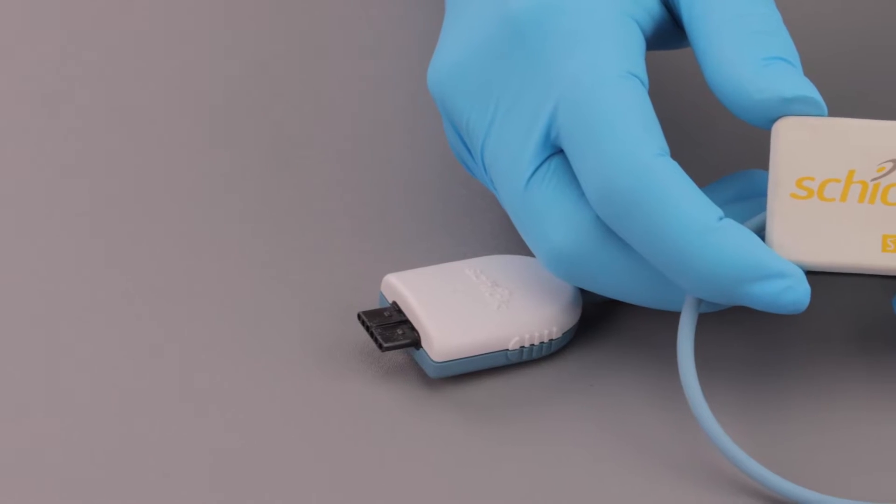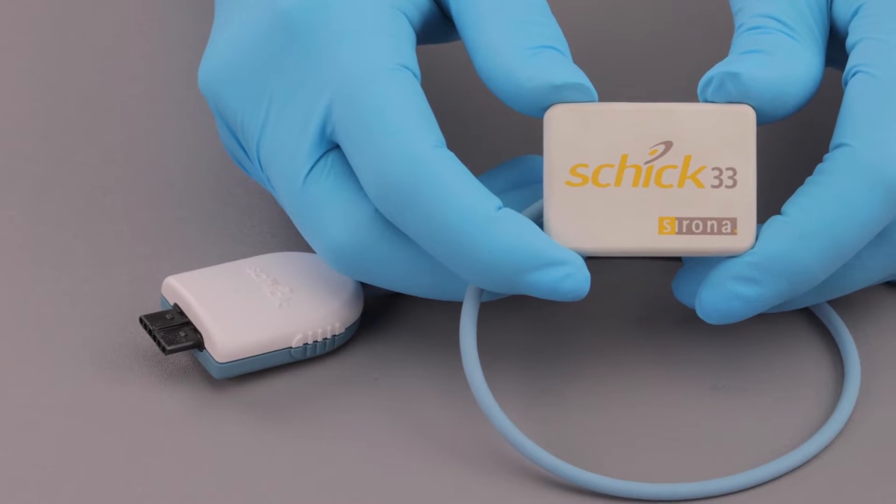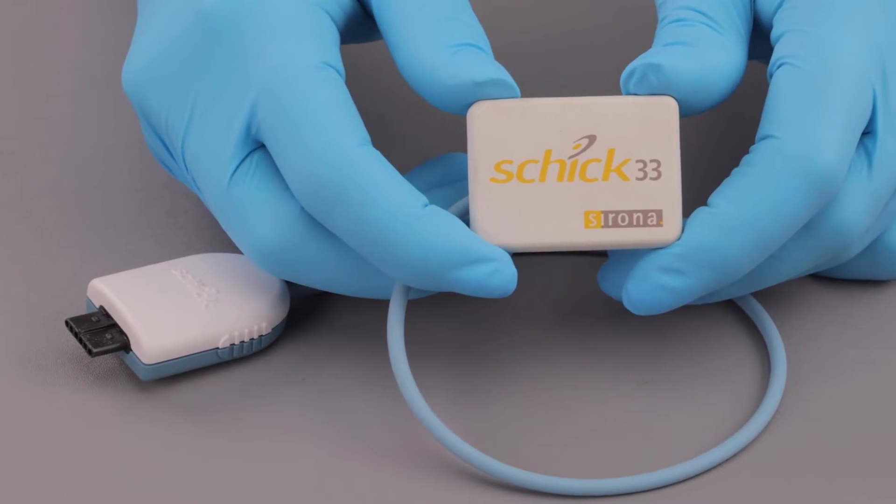Before beginning, you may also want to grab some powder-free gloves and make sure you have tweezers available. Now let's get started.